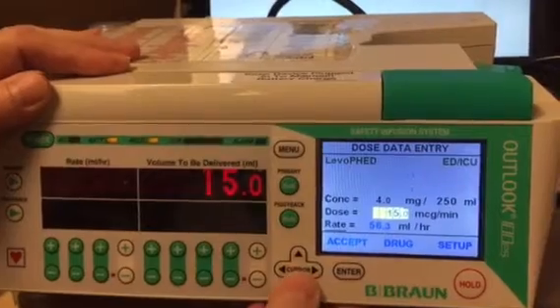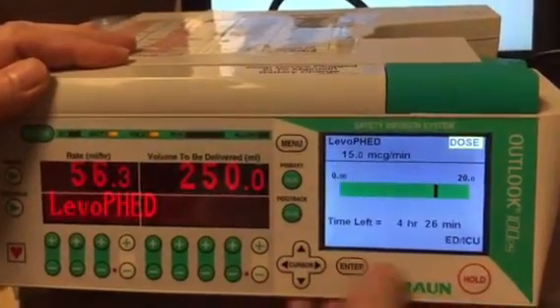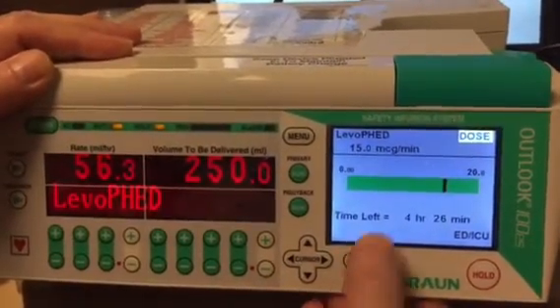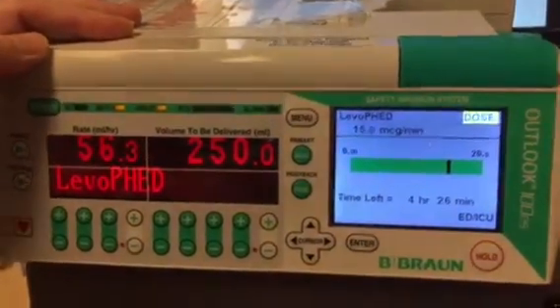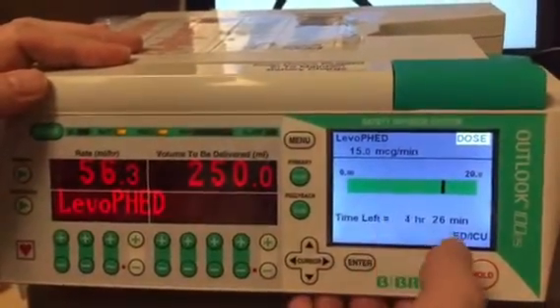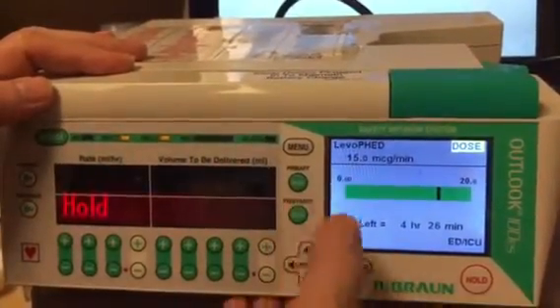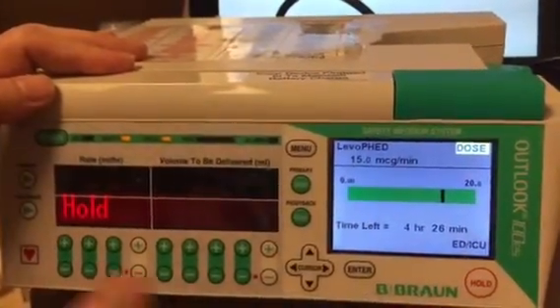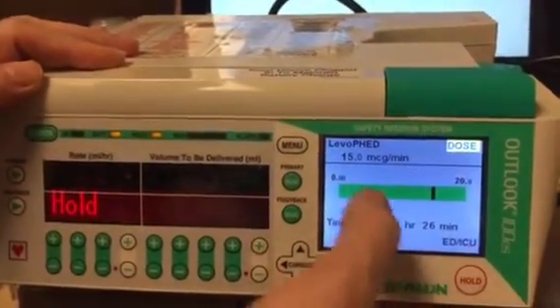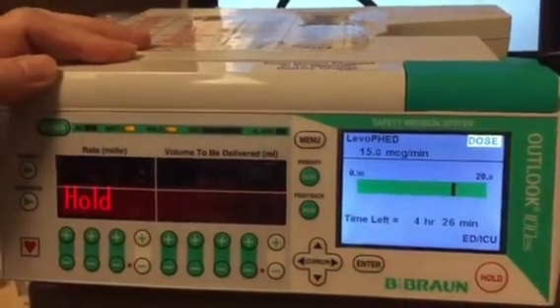Then hit enter, and accept — and that's how you do it. Once it's in hold, hitting the enter button twice will bring you up to the setup page. That's very important whether you're doing a Levophed drip, a Neosynephrine drip, or any drip that is adjustable. If you have to readjust it — increase or decrease the mics per minute or mics per kilogram per minute — you have to get up to the setup page, and it's only by putting it in hold and entering it twice that you can do that.